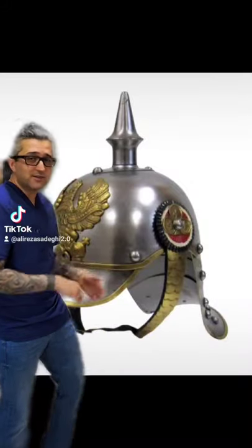This right over here is a German spike helmet, or a Pickelhaube, and you might see it on your patient's EKG. I know, but let me explain.